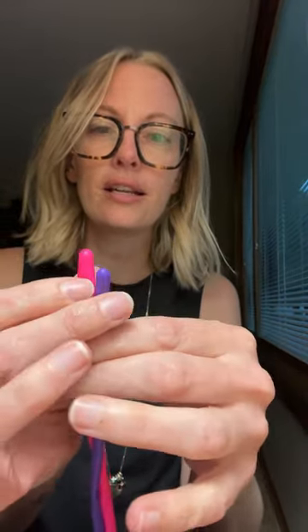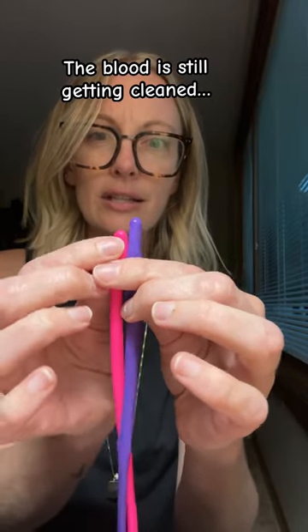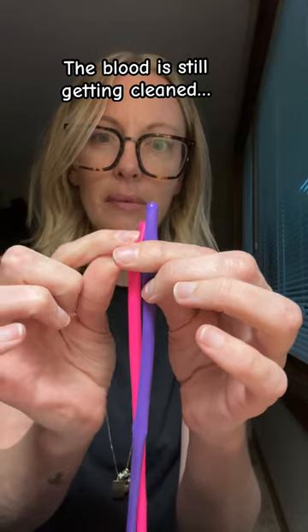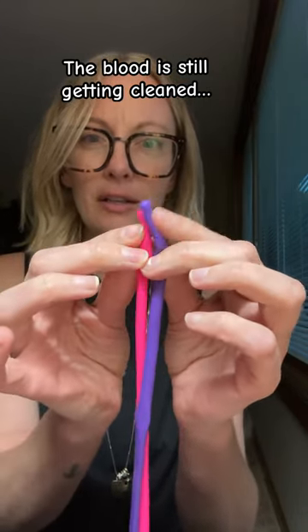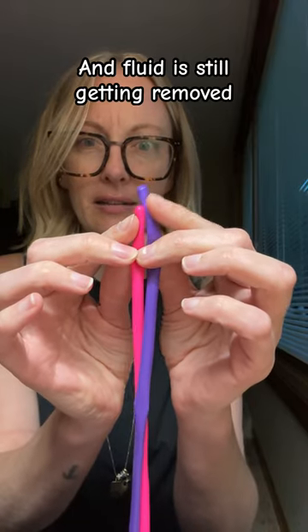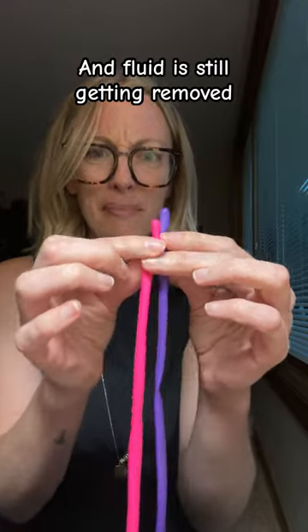The reason why that's okay is when it's in your bloodstream, the ports and the lumens kind of look like this — they're just a little uneven. So sometimes when we pull blood from the red line, the flow is obstructed a little bit by the tip of the catheter and you get a lot of alarms and then you start to feel really crappy.